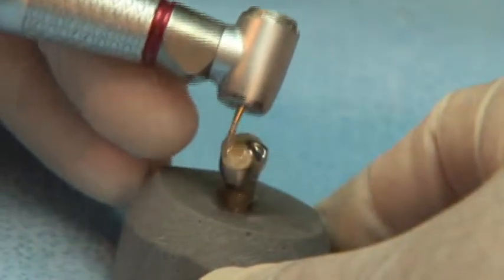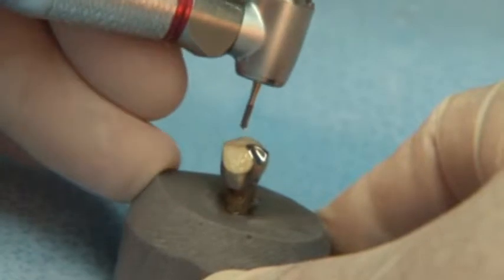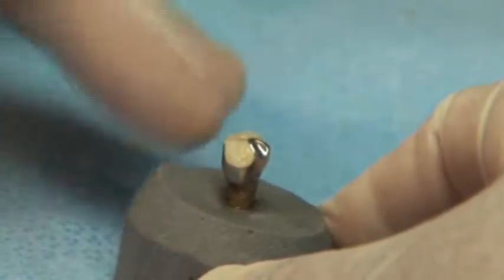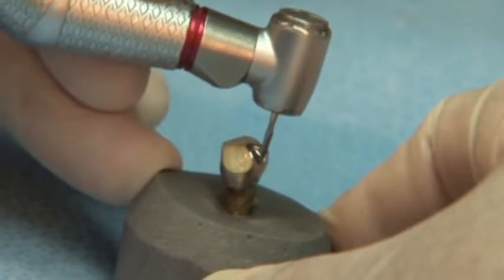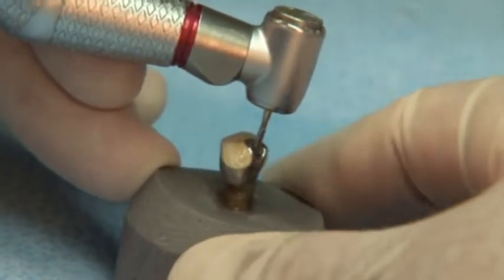By increasing the dentates and incorporating enhanced blade geometry, the Great White Gold Series burrs cut faster than a standard dentated carbon burr and smoother than a straight bladed burr.